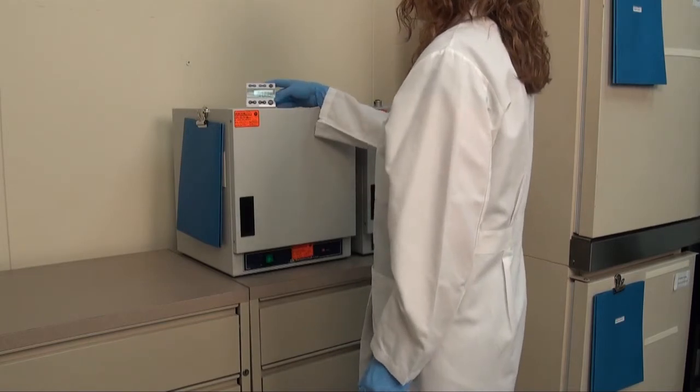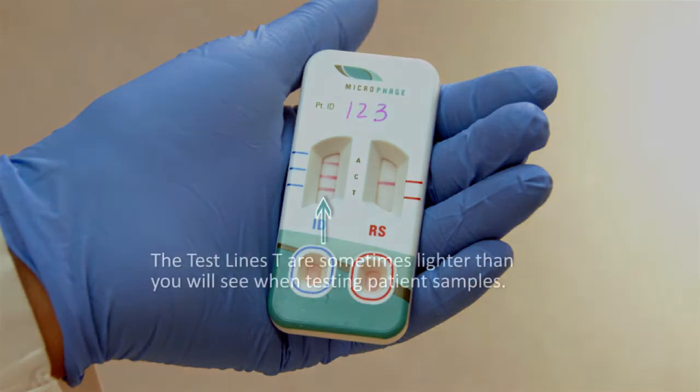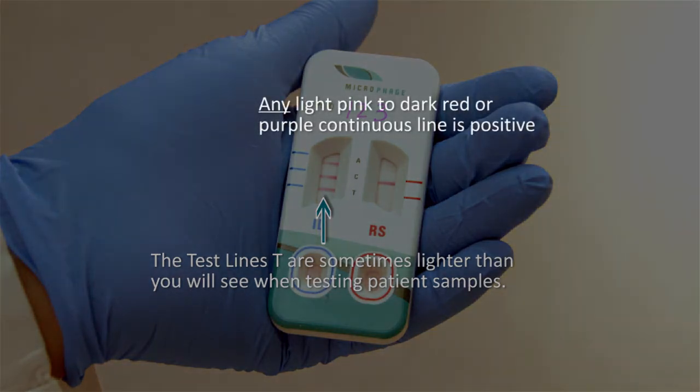Note that when running the external control procedure, the test lines T are sometimes lighter than you will see when testing patient samples. This is expected and is due in part to the absence of patient blood in the control samples. Also, as with patient testing, remember that relative line intensities are not relevant to the result, and that any light pink to dark red or purple line is positive.